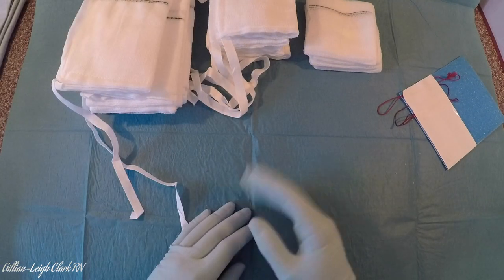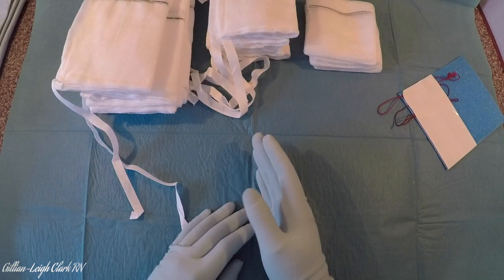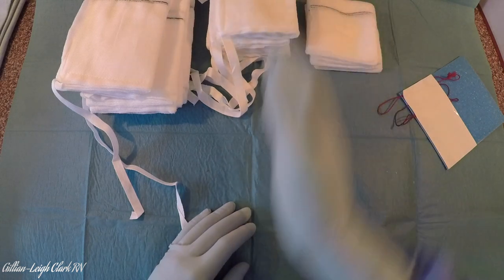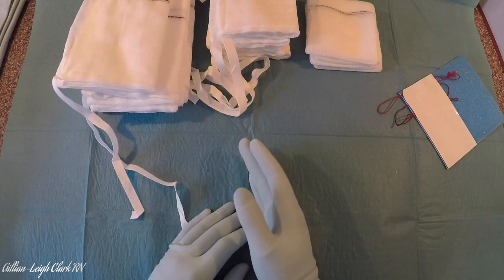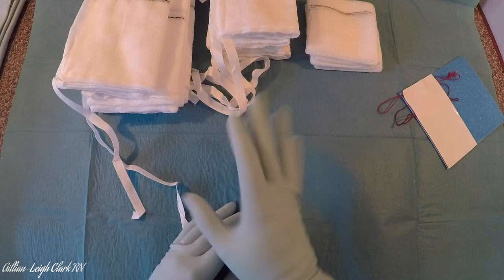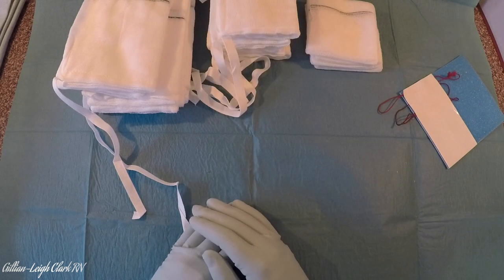If you were to count 2 packs of taped swabs, for example, you would do them in order: your small swabs, two packs of taped swabs, and then your muslin packs — that's just to make it easier to document. You would always keep them separate until they were counted, and once they were counted and accounted for, you could then pile them together at your leisure.